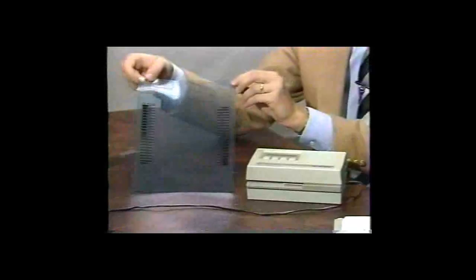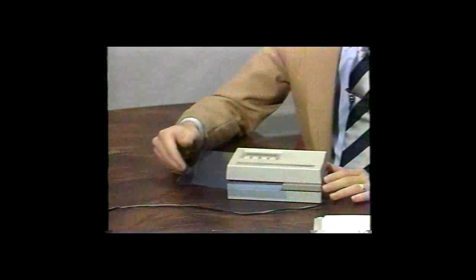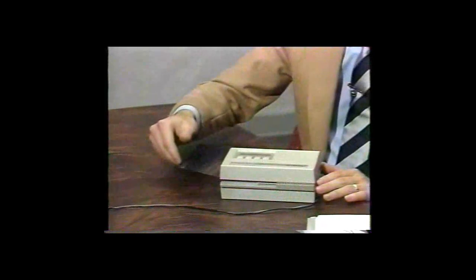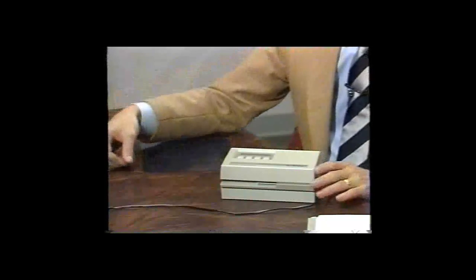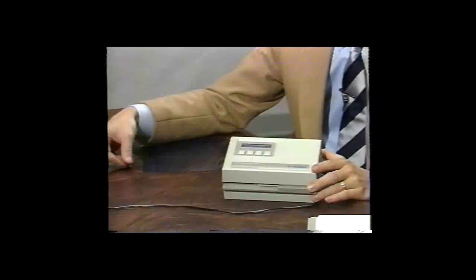For sheet film, simply insert the film all the way to the edge of the densitometer until it grabs onto the film and automatically reads it in. The densitometer will give you an indication that the film is being read and has been accepted. For cine film, emulsion side down, insert it underneath the guide. Feed the strip until the unit takes hold and automatically reads the strip in.